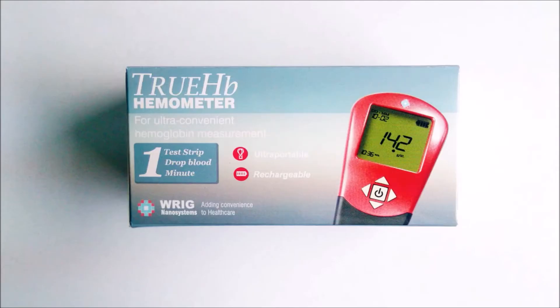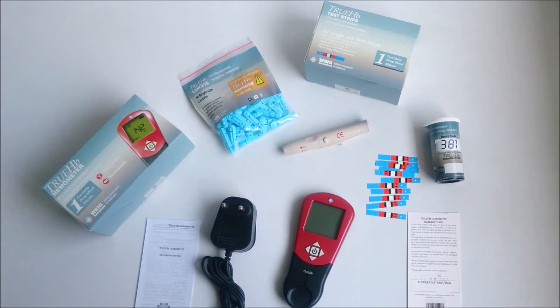In this kit we provide a hemometer, a lancing device, a pack of lancets, a strip bottle, user manual, warranty cards, and a charger. So let's see how this device works.